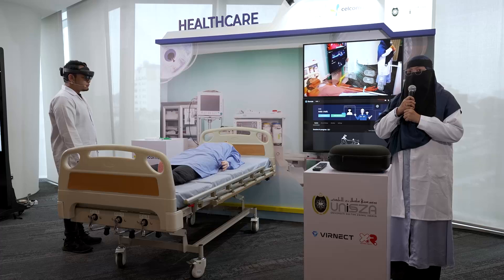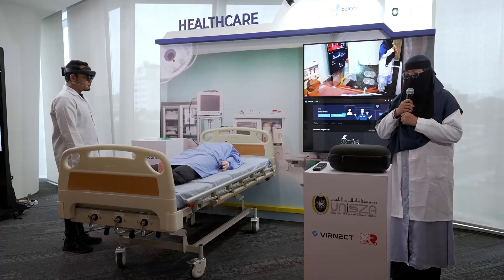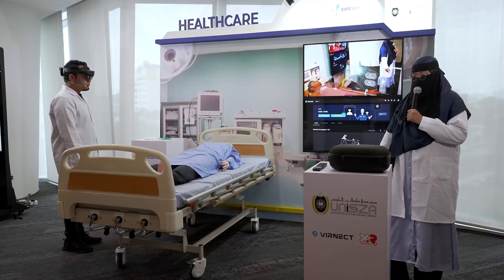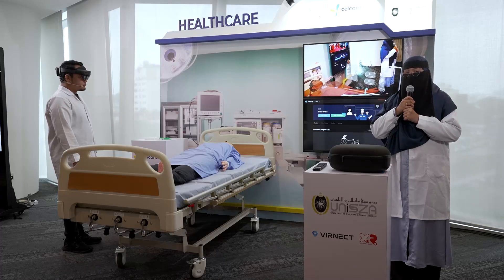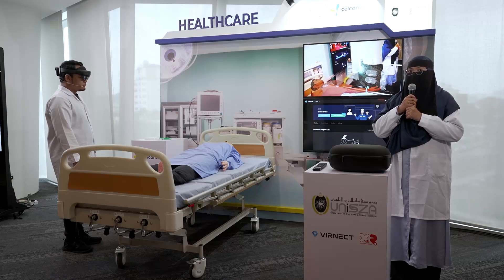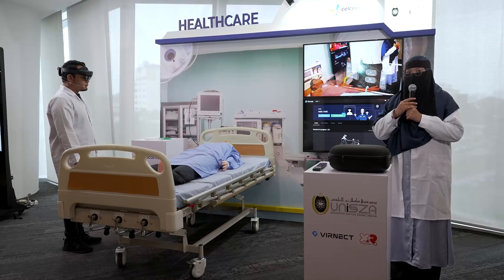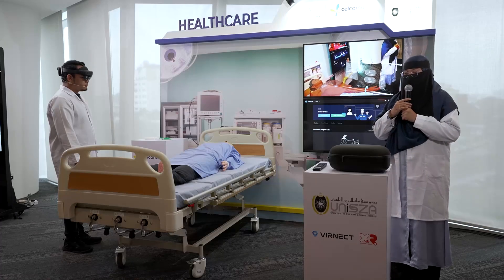Today we will show you our smart medical holography experience. This AI, AR, and XR technology will enable medical students to perform hands-on surgical procedures for effective learning. Now I will have my partner show you a demo about the medical holography experience.